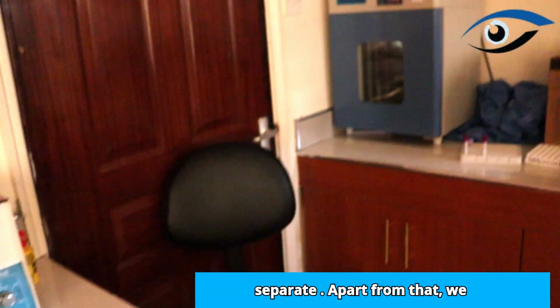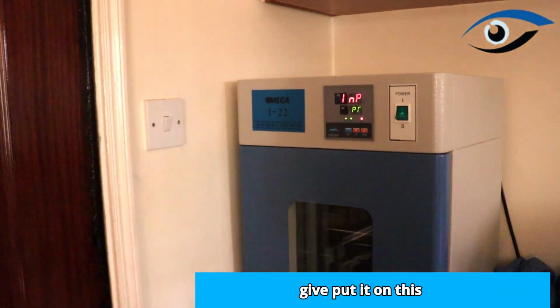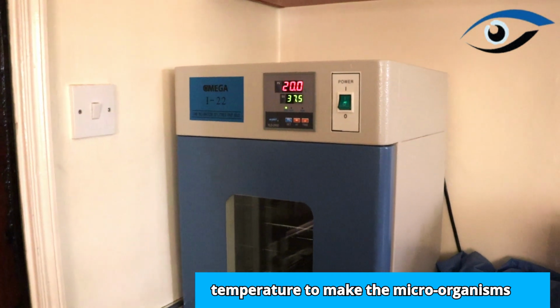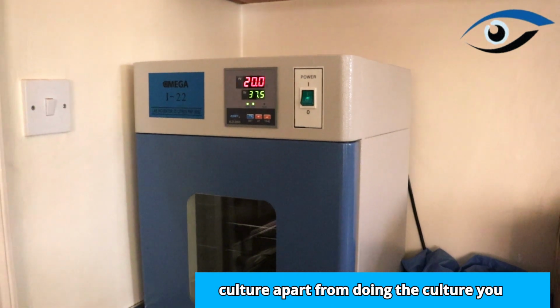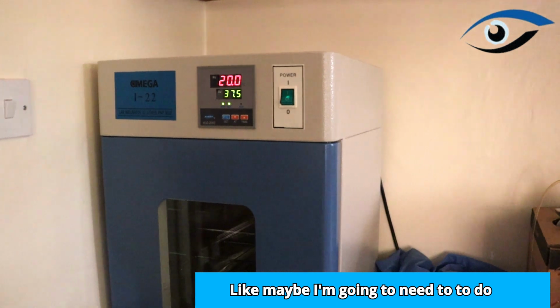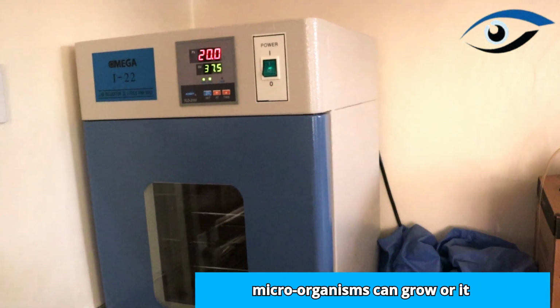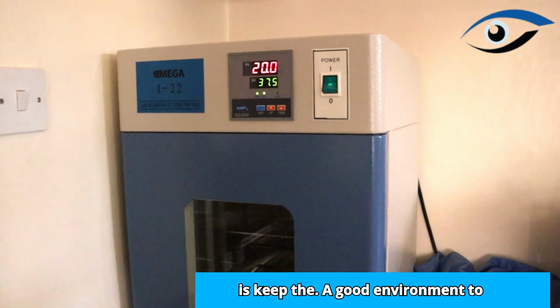Apart from that, you also have another machine here. I can maybe put it on. This machine is the incubator. Some of the tests need a specific temperature to incubate to make the microorganisms grow, like if you are doing a culture. Apart from the culture, you may want to do special tests like blood transfusion. This is where the temperature is regulated, a temperature at which microorganisms can grow, keeping a good environment to run a test.